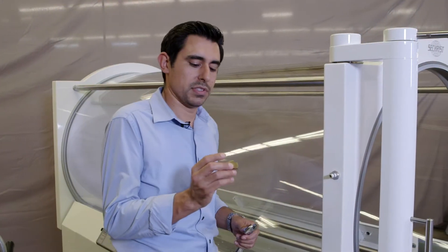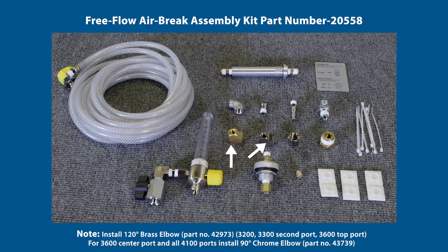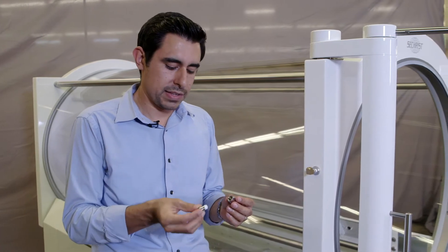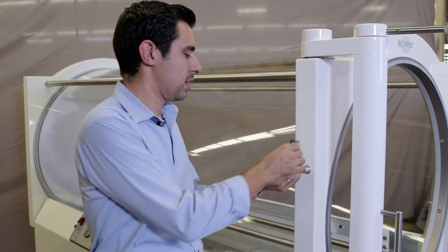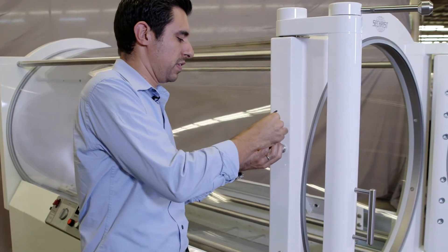The next step is to install your brass elbow onto the pass-through fitting. Use a crescent wrench to install and verify that you align the fitting with the hole vertical. Then insert your DISS fitting into your DISS nut and use a 3/16 Allen hex to install into the brass elbow from the previous step.